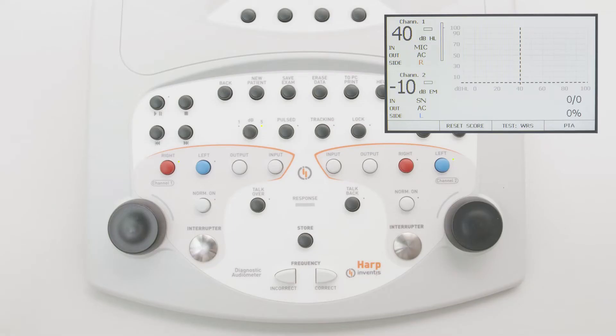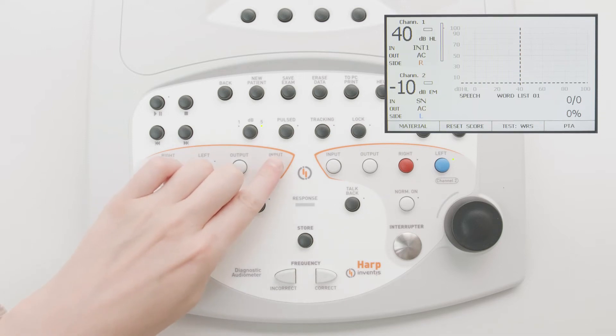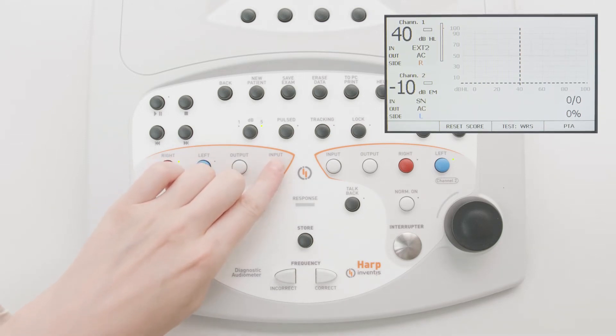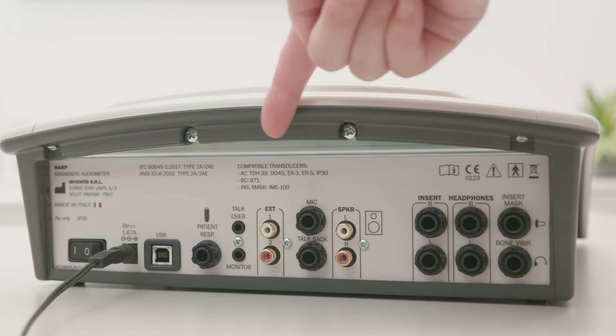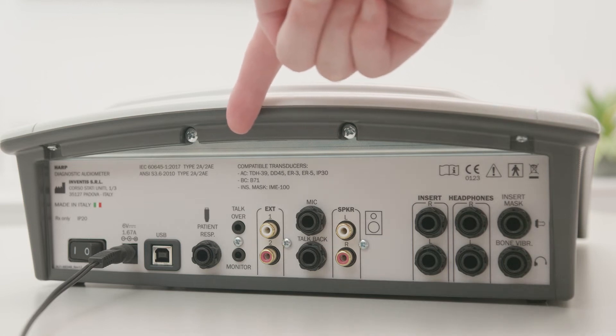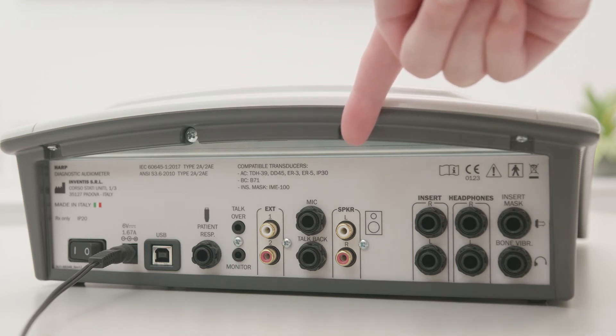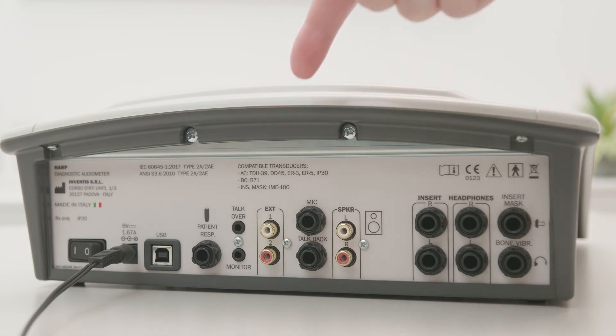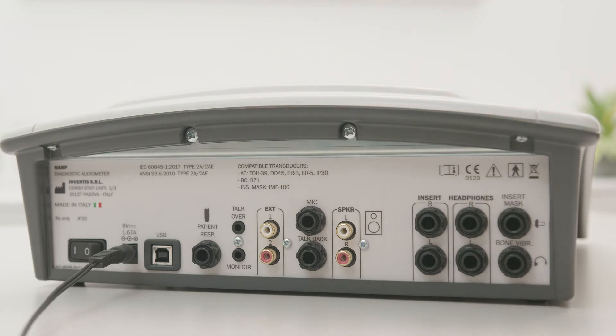The input buttons are used to select the input signal. The input signal for speech audiometry can be a microphone for live speech, connected to the mic or talk-over inputs on the rear panel depending on the setup, an external audio source connected to the external one and external two inputs, or — only for the plus model — the internal flash memory on which the speech material is already stored.